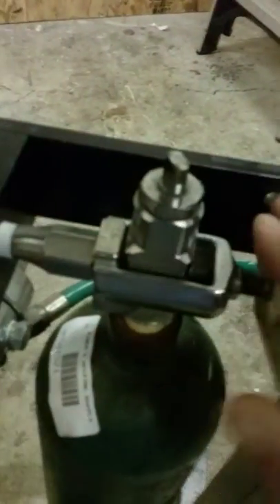If you're quick, you can do this even while the rat is anesthetized. Best to close the old tank and then open the new one after it's inserted. You'll know it's time to replace the tank when this valve gets solidly into the red zone — at least halfway through the red zone.